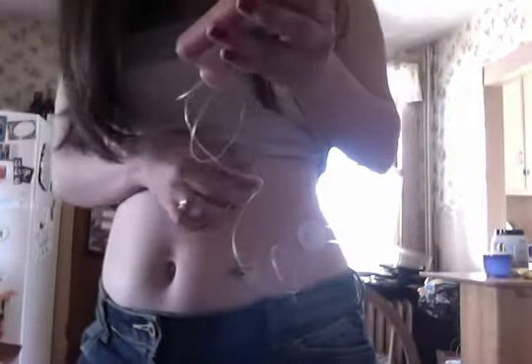And then I fix prime for 0.9. And there you have it, ladies and gentlemen — that is the Paradigm Silhouette. It may look really uncomfortable, but I actually find that the first time I ever wore it, I was really, really thin, so I didn't like how it felt. Now I am in love with it. I love the way it feels, and I really like that it's kinda smaller.